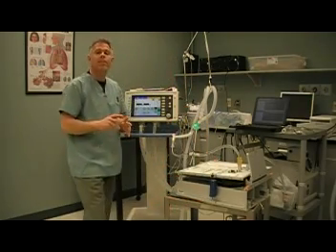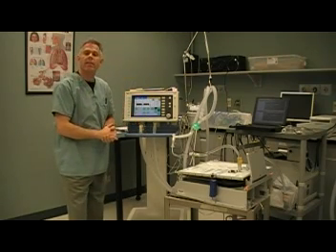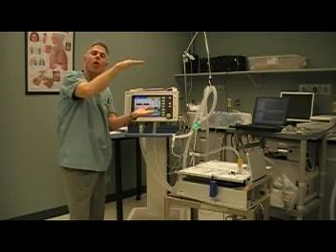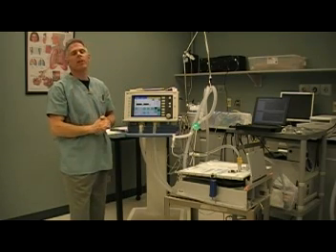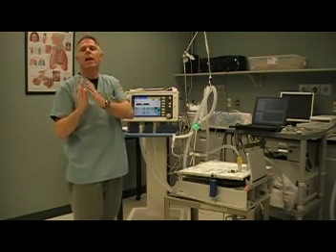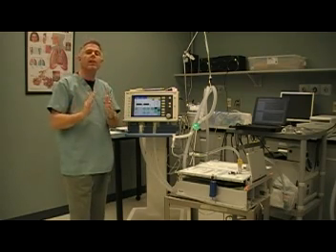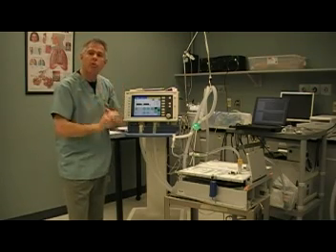The amount of pressure that's delivered, just like with all modes of pressure control, determines the size of the breath — the tidal volume. That difference between the IPAP and the EPAP determines the amount of volume delivered with each breath. The unusual element of this mode is that often we have much longer inspiratory time, so the inspiratory pressure is held for a much longer period of time than the exhalation. Inverse I:E ratios are not uncommon, where inspiratory pressure is held much longer than the expiratory pressure.